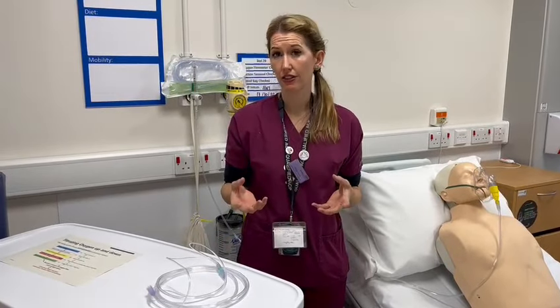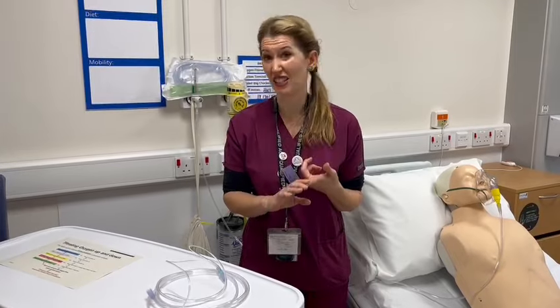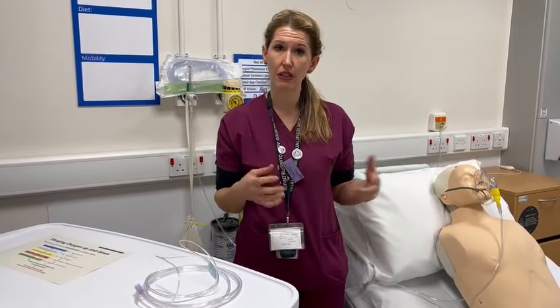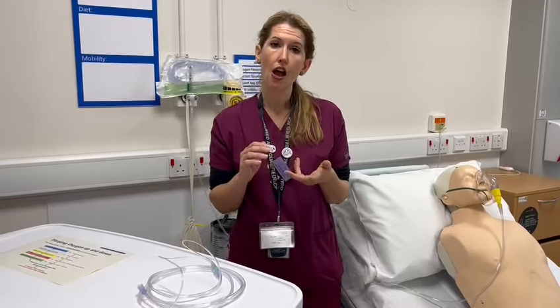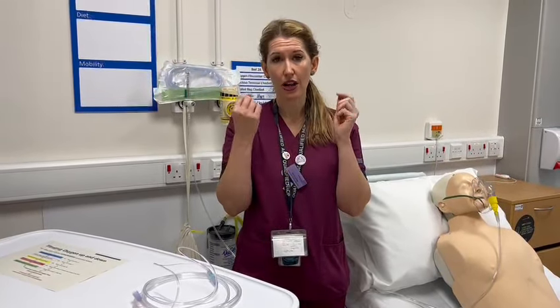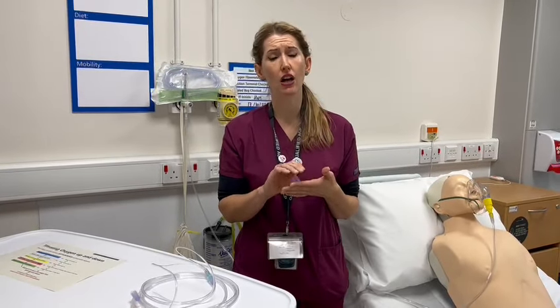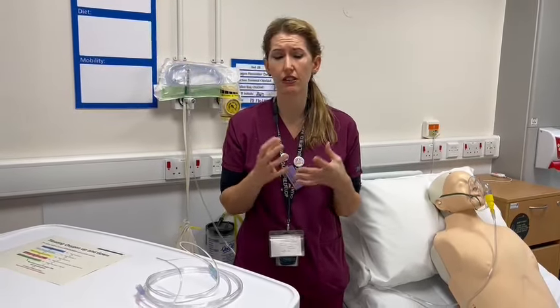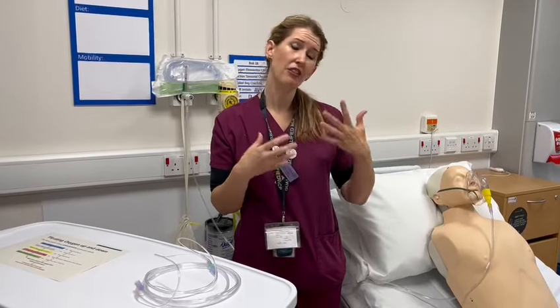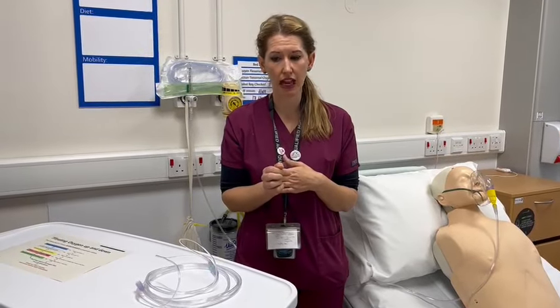The reasons that you might need to consider doing this is when your patient needs to eat and drink throughout the day. You don't want to leave them without oxygen because they obviously need oxygen. If they're using nebulisers, you can also entrain oxygen through nasal cannula. And also, it's an alternative if your patient can't tolerate it, such as they get really claustrophobic. So those are the conditions that we would be mainly thinking about when considering whether we need to switch our patient to nasal cannula.